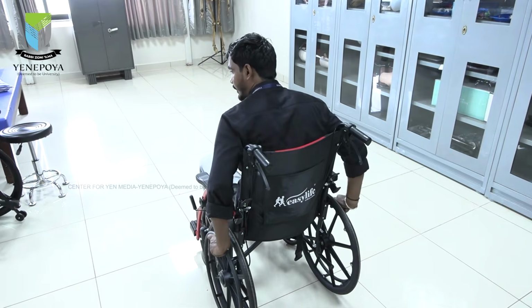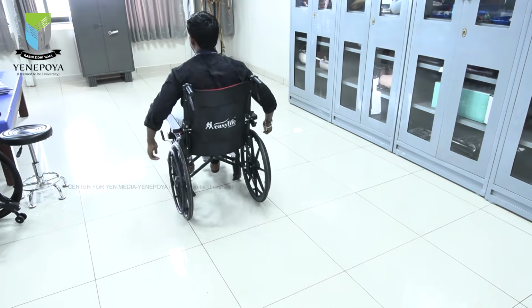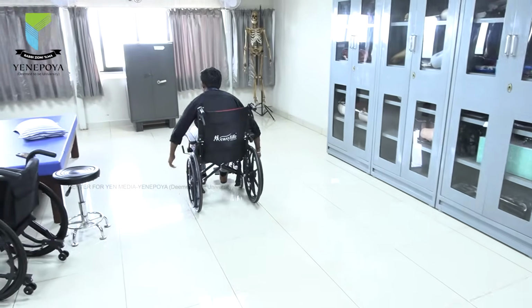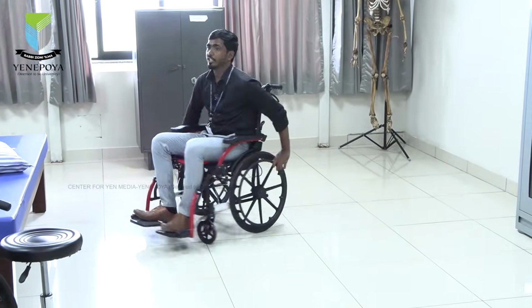The next one is single loop. So I will start from here, I will do it here only. So like this the hand will come. Okay, this is mostly done by persons in the athletic field.